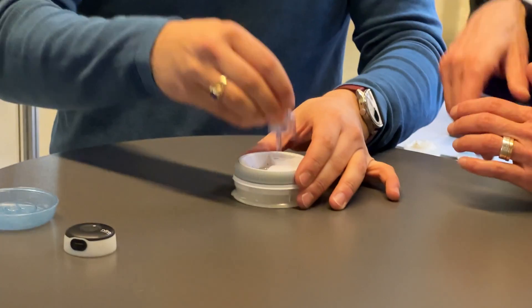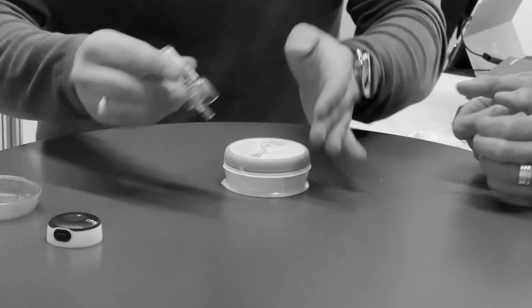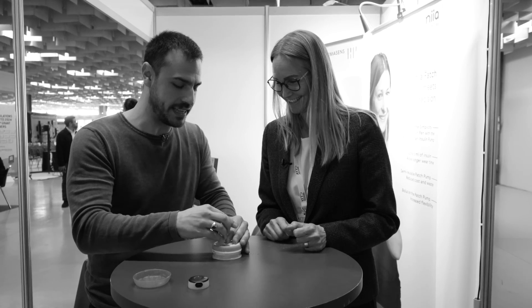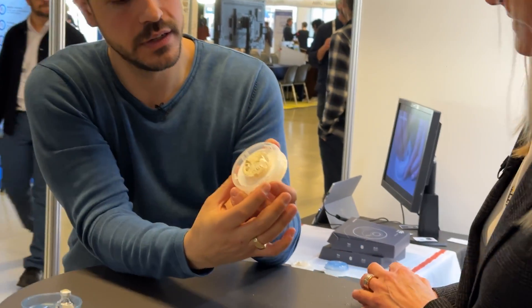So now take this off — you take the bottle first, then the plastic. That was funny — we knew that could happen but didn't say anything. So right there, you have the patch.